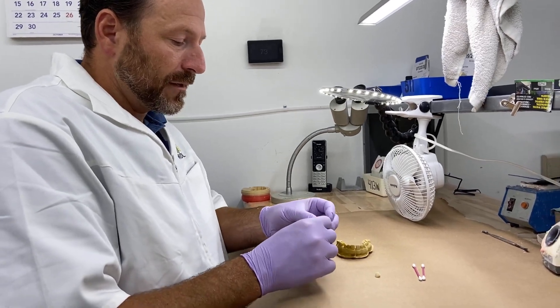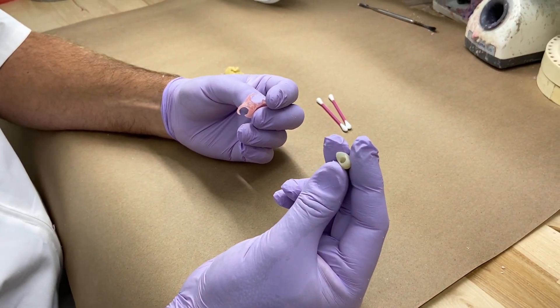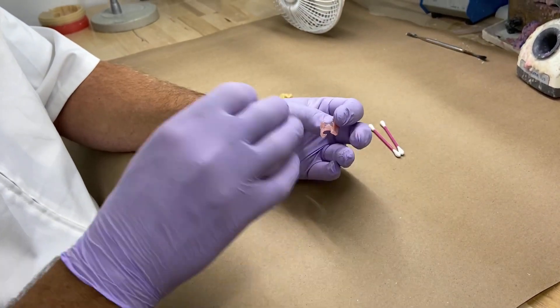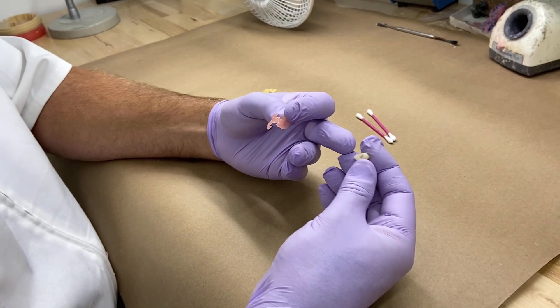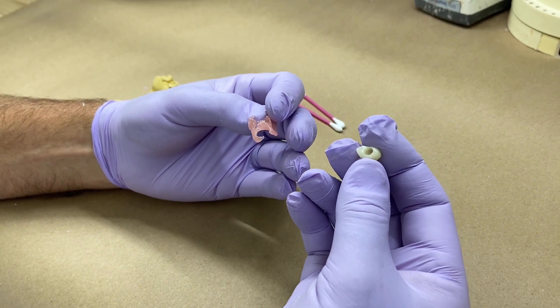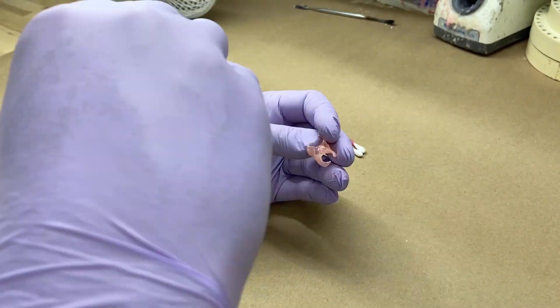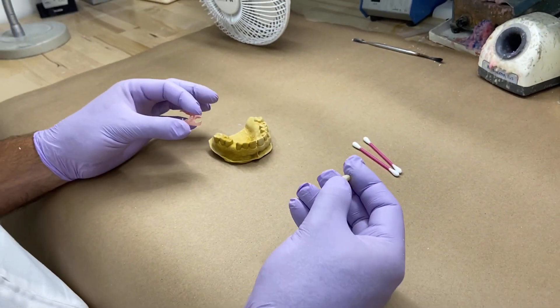What I've done already is create a stump. In the design of the tooth, I somewhat hollowed the tooth out, which when it's formed to the DuraFlex base creates a bump — and that's good for lateral stresses on dislodging that tooth. We'll still create some mechanical retention up in that hole, even though we're going to get a chemical lock, which allows for a little extra mechanical lock. In the DuraFlex base, I've drilled some retentive holes on that post as well as in the periphery of the ridge, kind of making an undercut that it'll lock into. So everything is mechanically based as far as that's concerned.